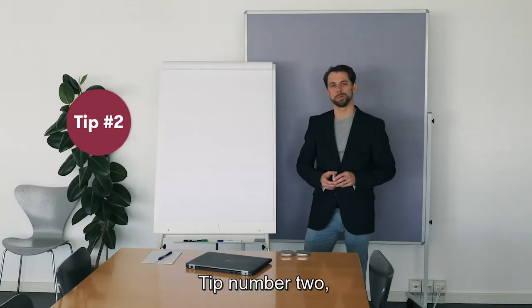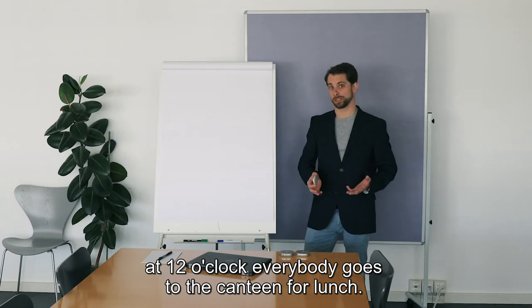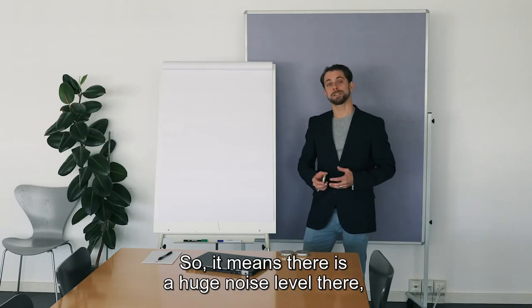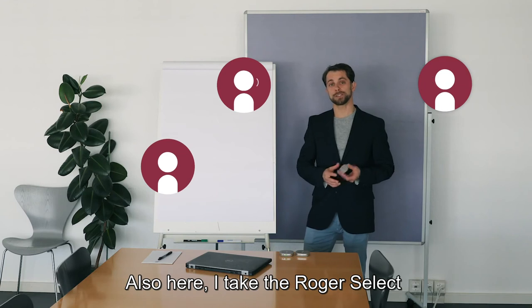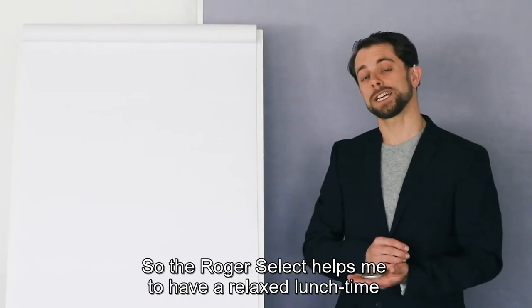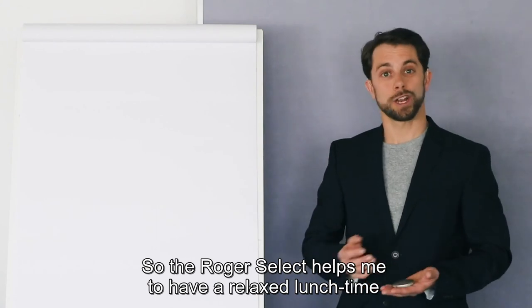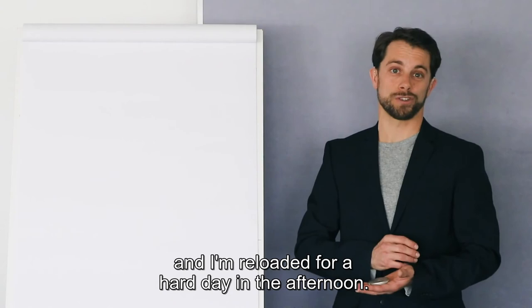Tip number two: At 12 o'clock, everybody goes to the canteen for lunch. This means there is a huge noise level there, making it hard to communicate with your workmates. Also here, I take the Roger Select and place it in the center of the table. The Roger Select helps me have a relaxed lunch time, and I'm reloaded for a hard day in the afternoon.